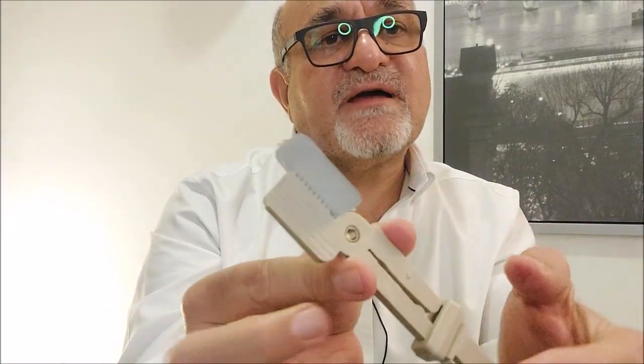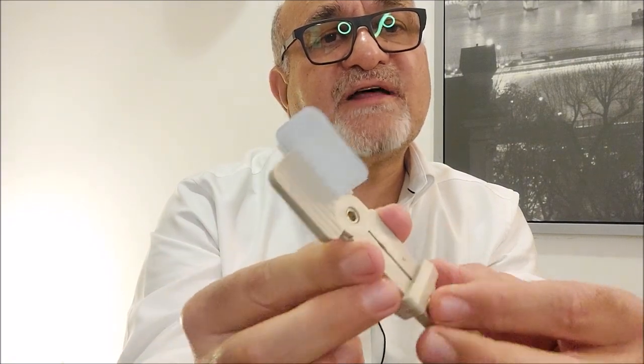You then lock the sensor in place so that it will be held firmly. The placement is quite simple — all you need to do is place the exposure side of the sensor on the stabilizers of the bite block, make it flush, and then slide the locker so that the lower border of the sensor is at the same level as the border of the bite block. This is how it's placed.